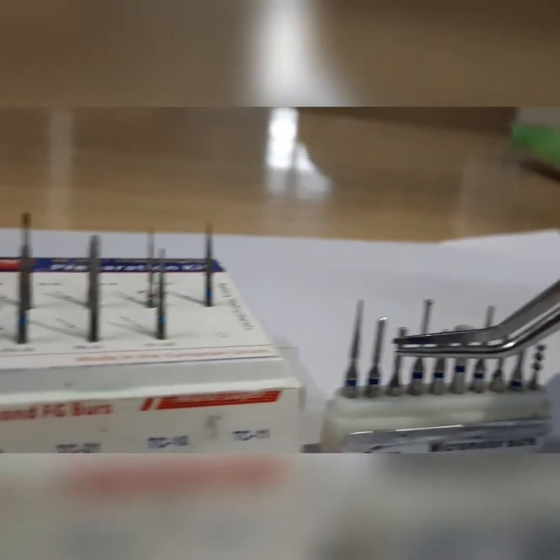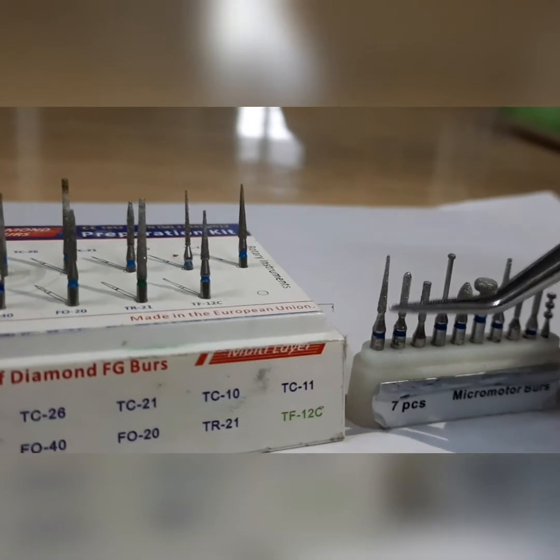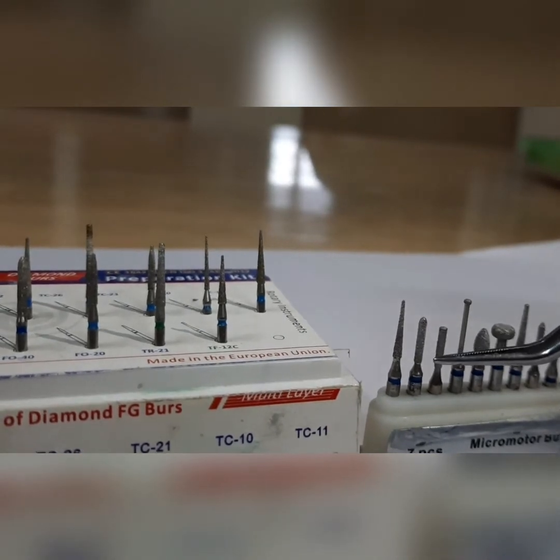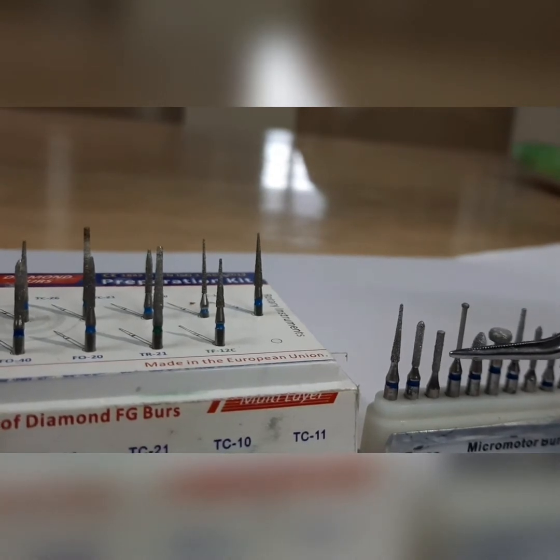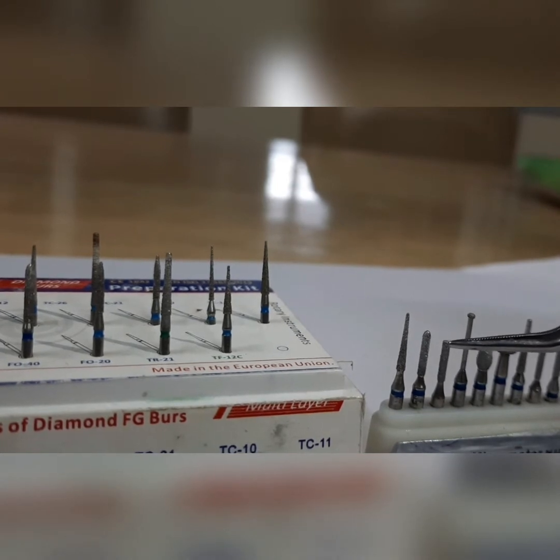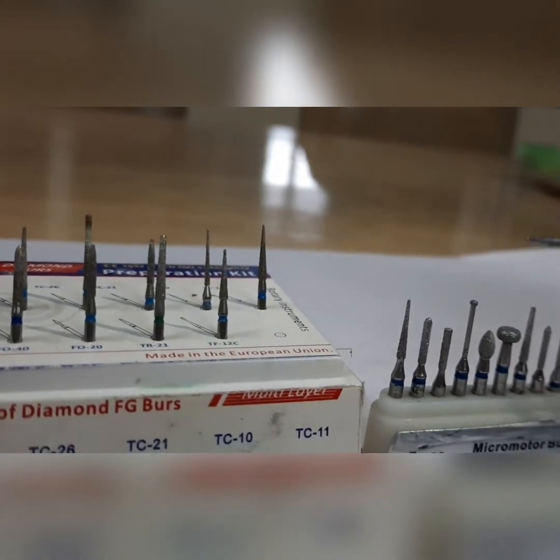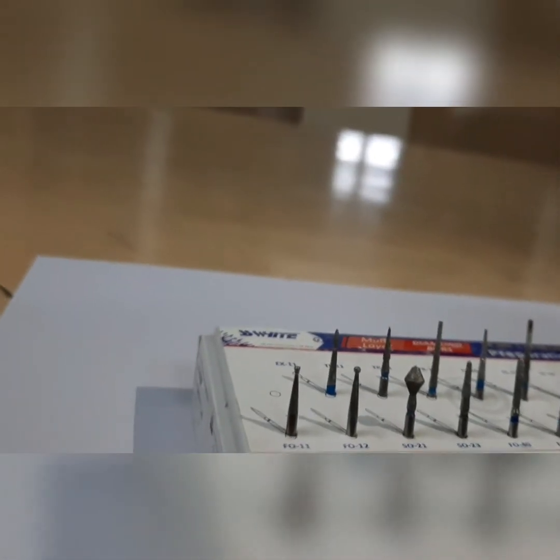Next is the needle thin tapered fissure burr. This burr is used for your proximal reduction and axial preparation. Since it is very thin, it is used in the proximal region so that you don't touch or nick the adjacent tooth structure.